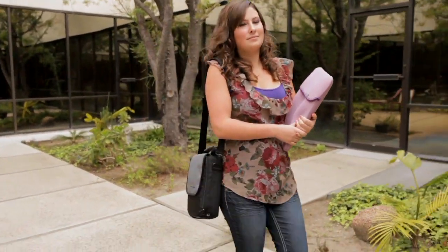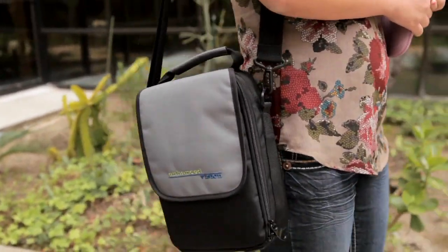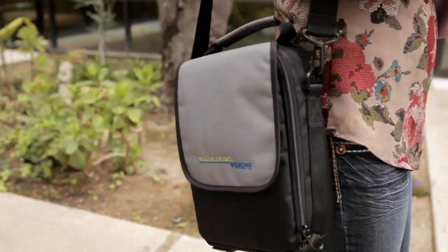It's very easy to carry around from class to class. If I have a communications class on one side of campus and I have a calculus class on the other side of campus, I just have to fold it up, put it in its little bag, and carry it around campus. It's just like carrying an extra purse or something.